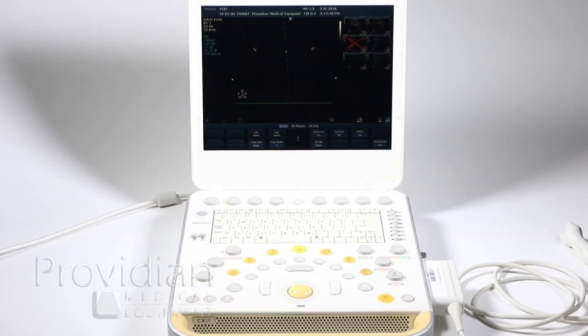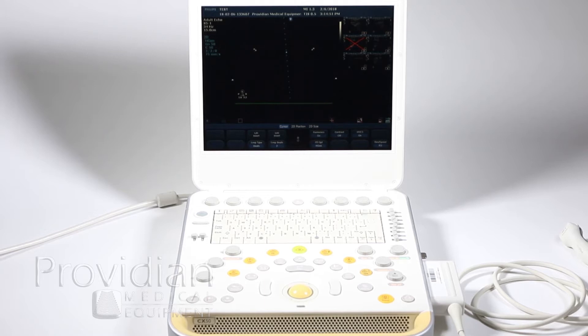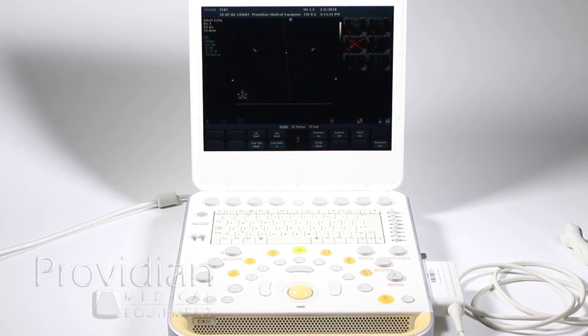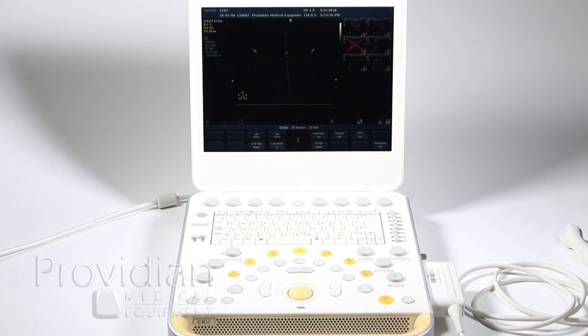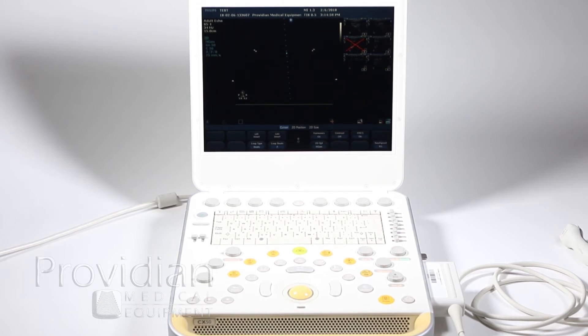For the system setup, let's start by saving a custom preset, something that many people do and I do recommend it, although the settings on this system are generally very good. Save a custom preset is pretty simple.